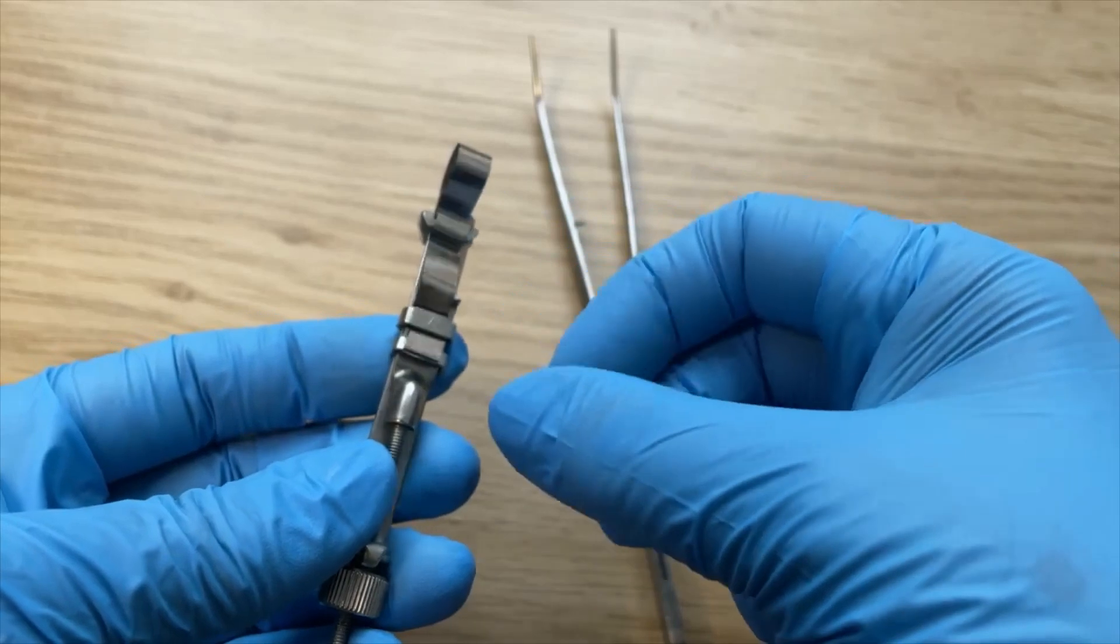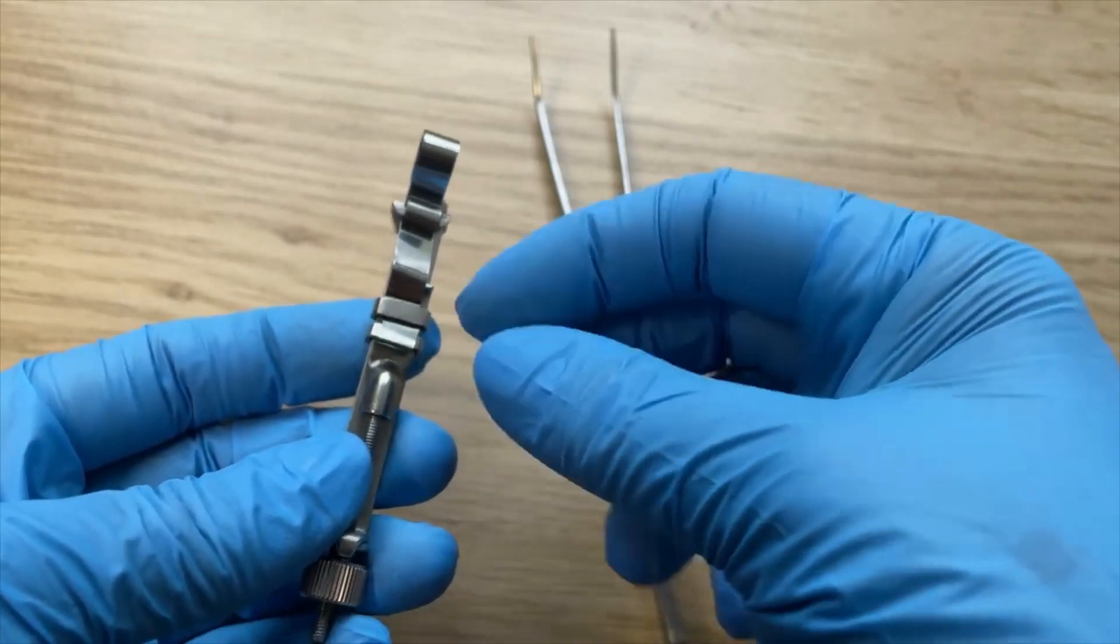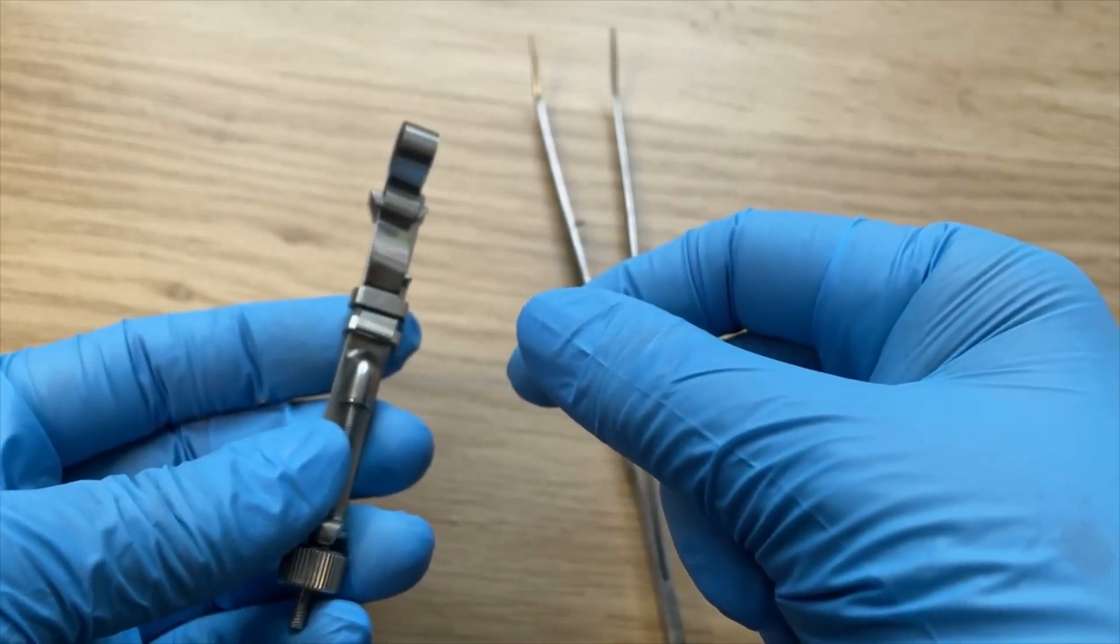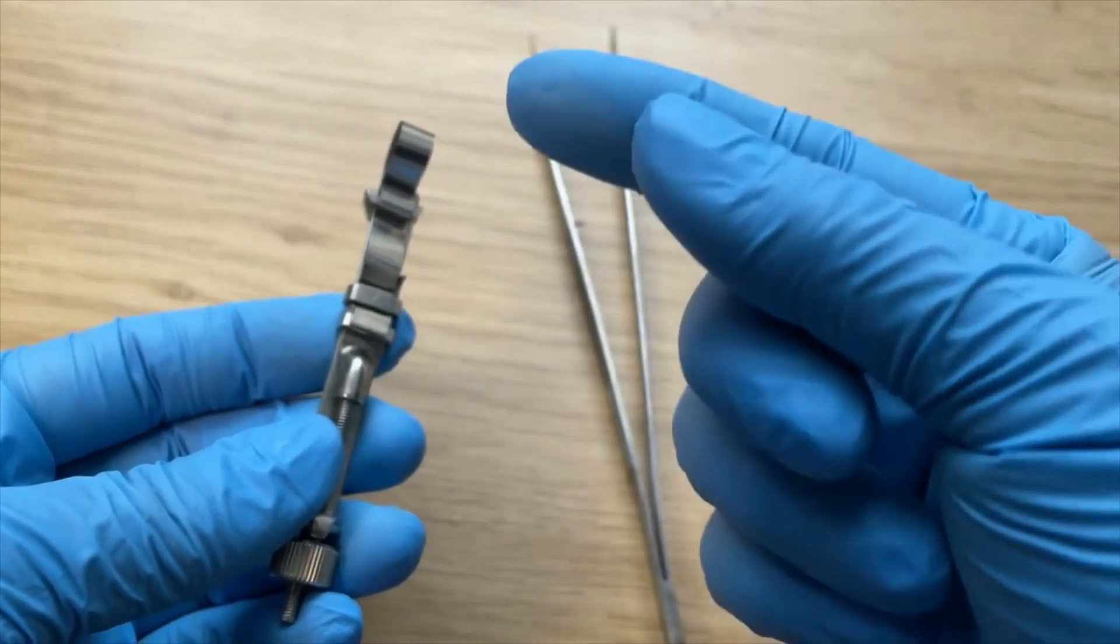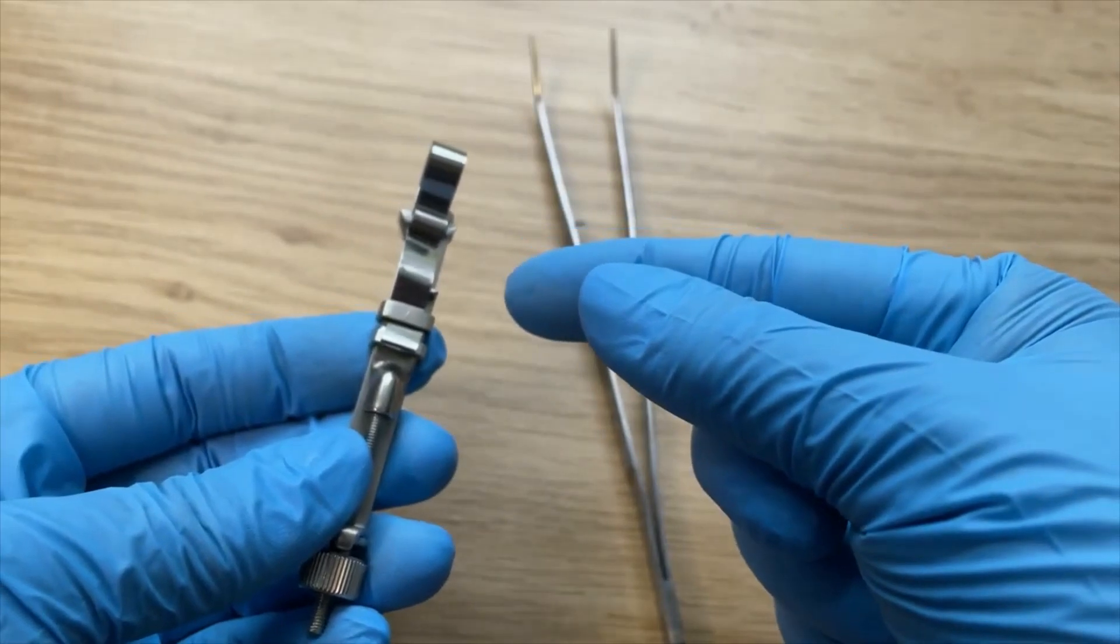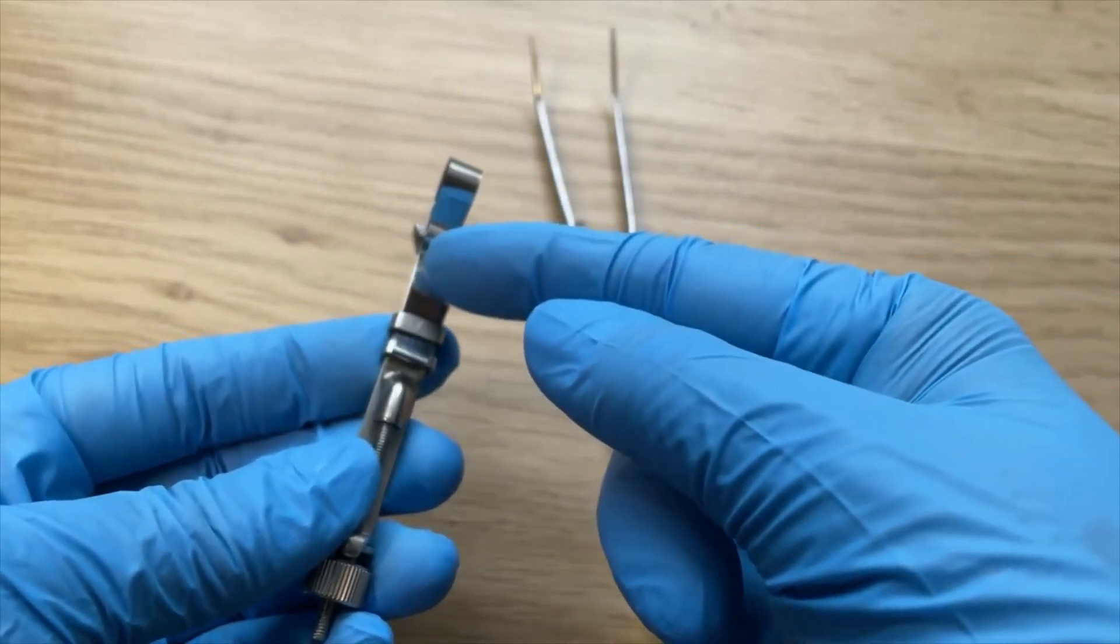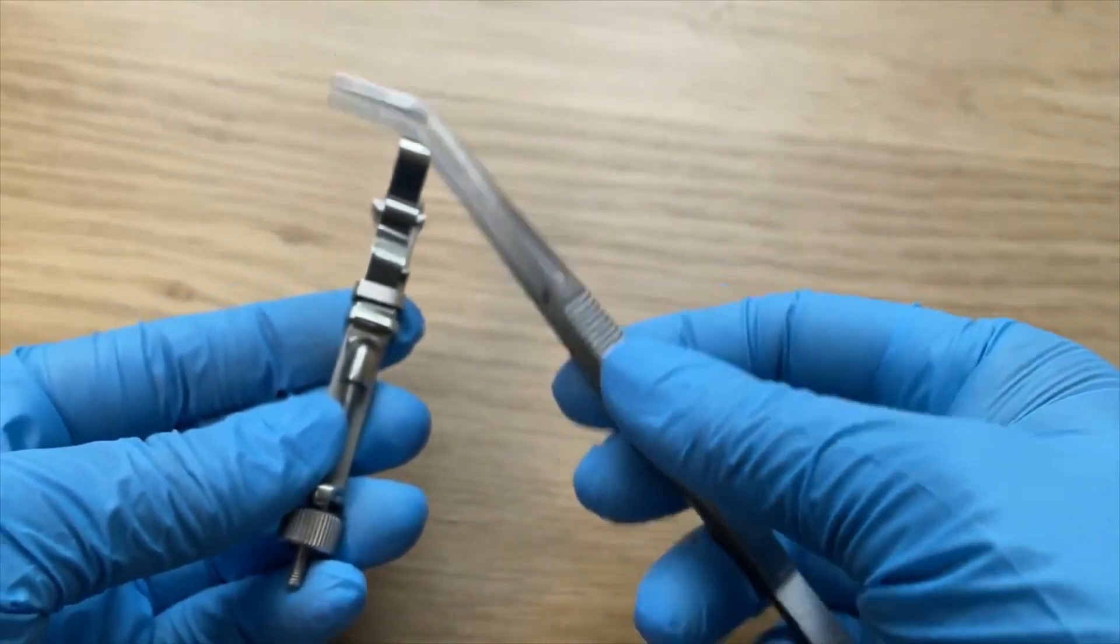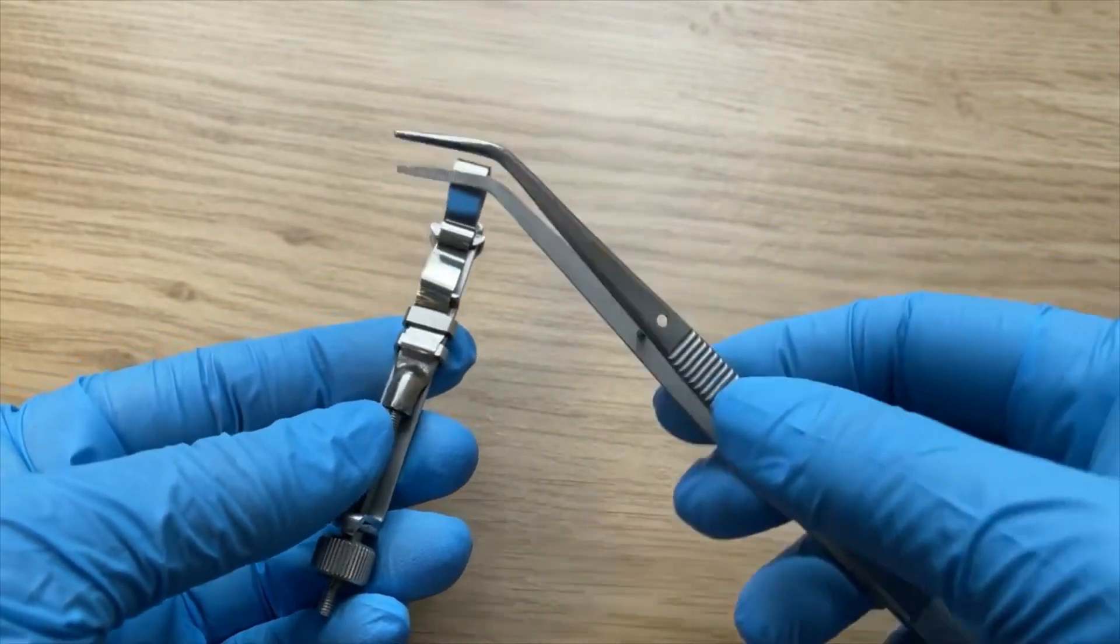The possibility of you cutting yourself when you're just using your finger is quite high. So please don't use your finger to remove the used band. Instead, take a college tweezer or cotton plier, however you call it.